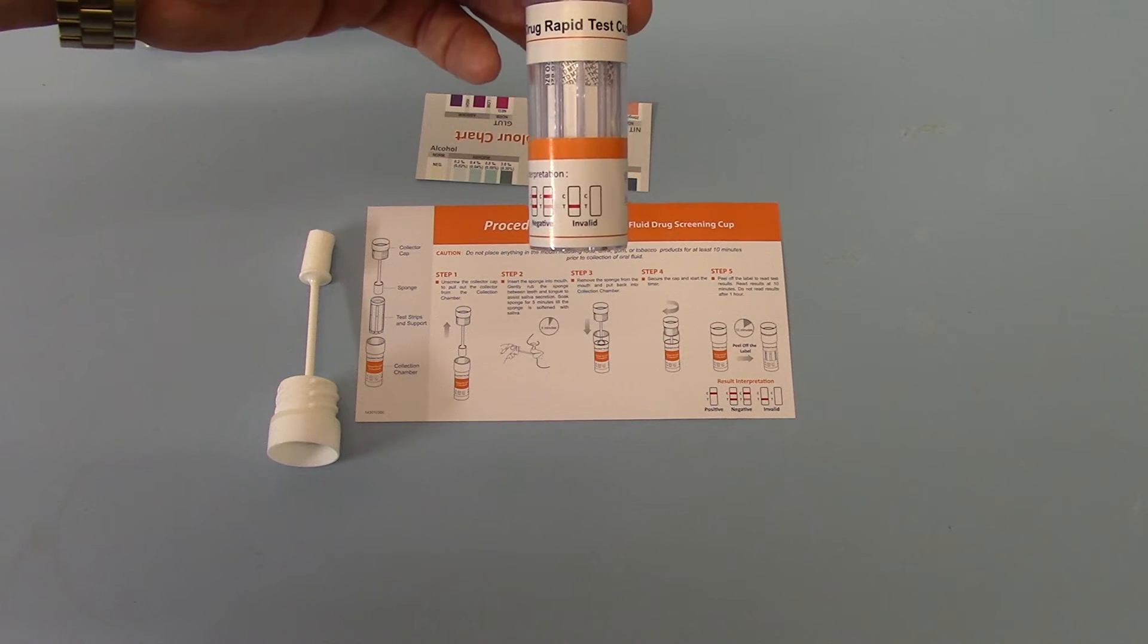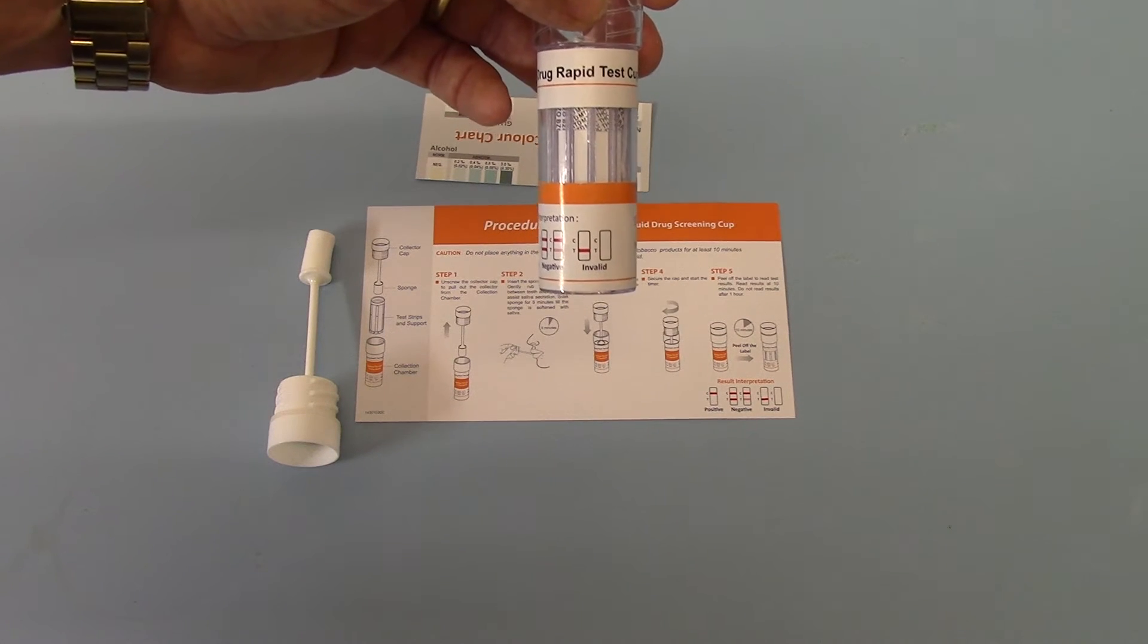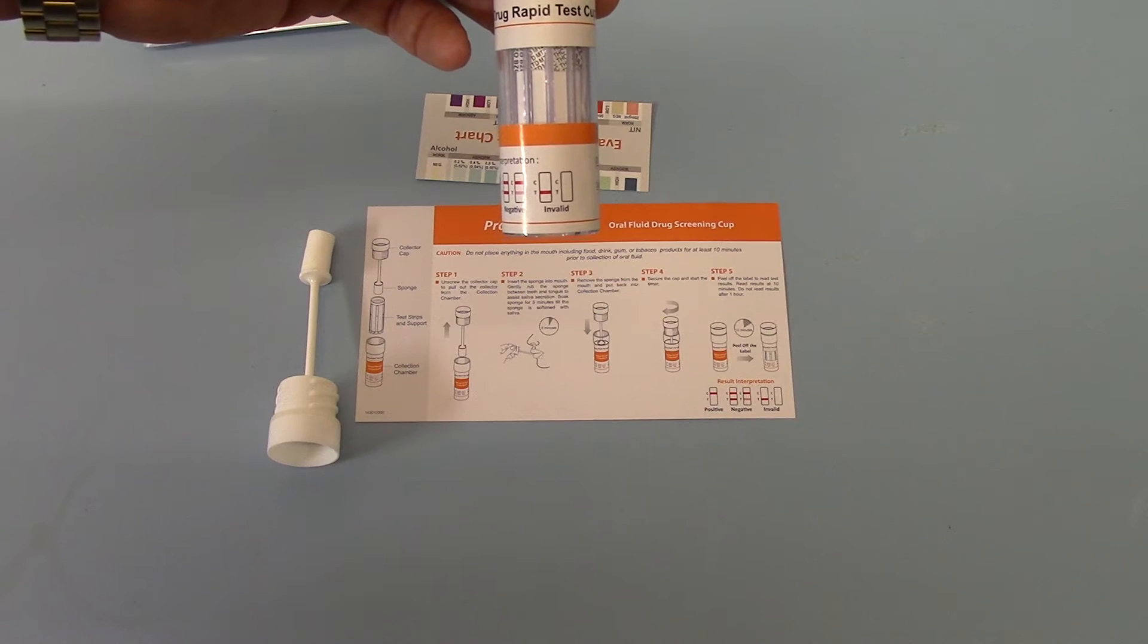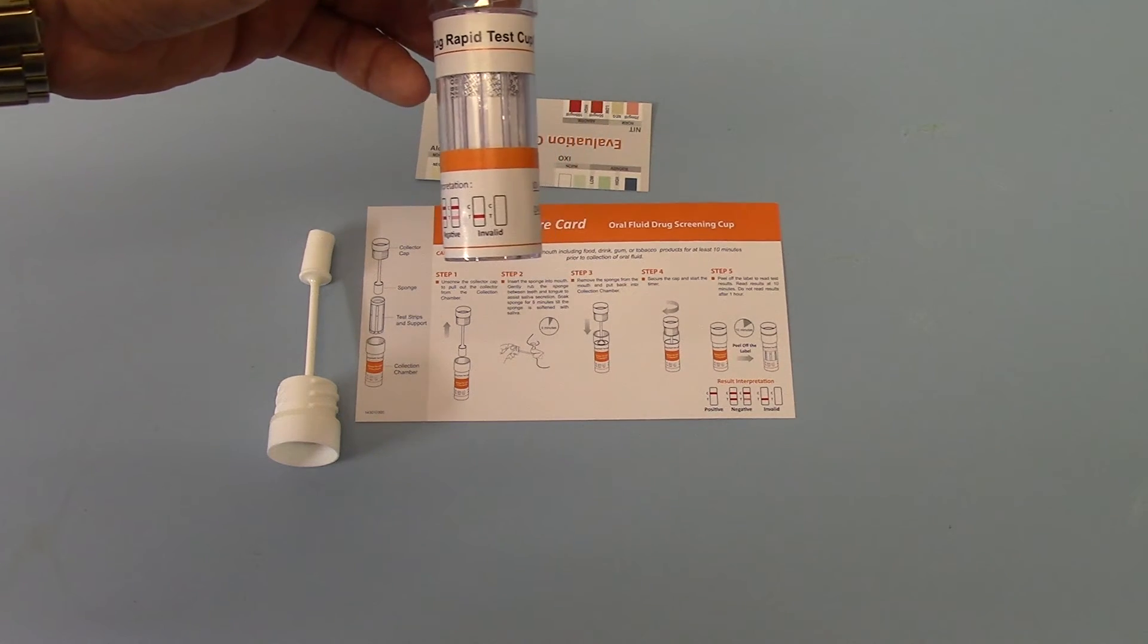These would occur most commonly if inadequate saliva had been put in the barrel to run all of the 12 tests included.